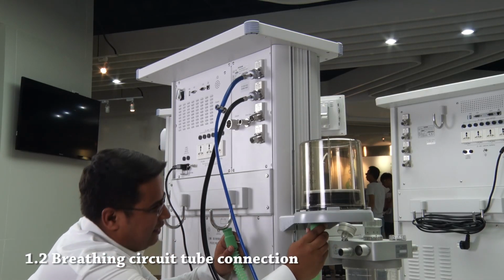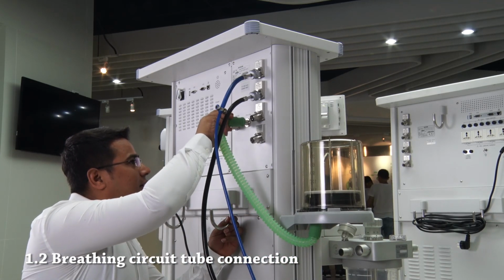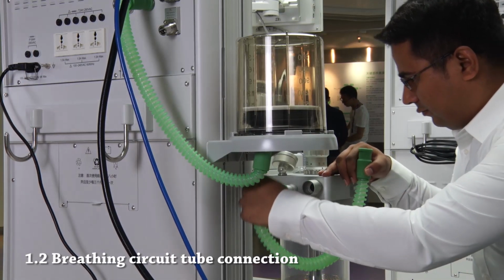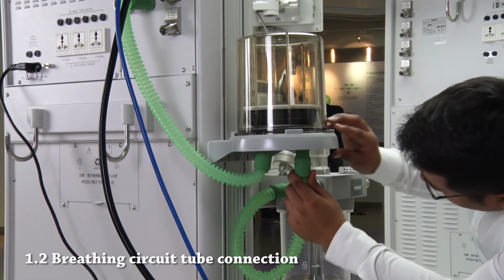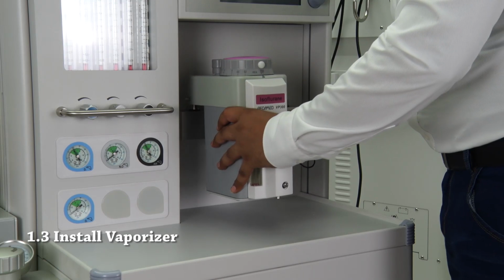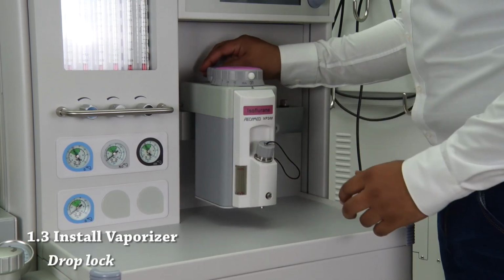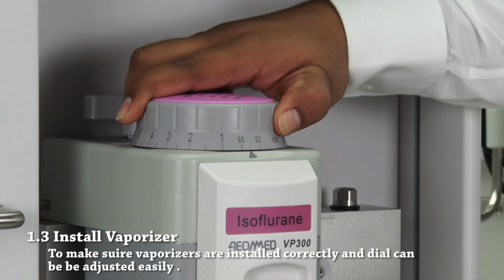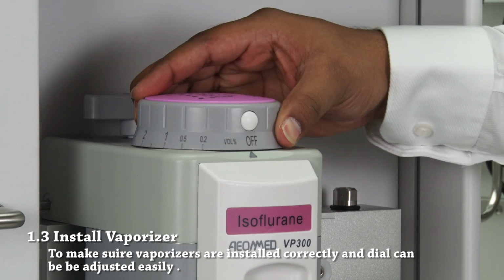Connect driving gas tube. Using the tube, connect breathing circuit with bellow. Install vaporizer and lock it. Make sure that vaporizers are installed correctly and that rotation is smooth.